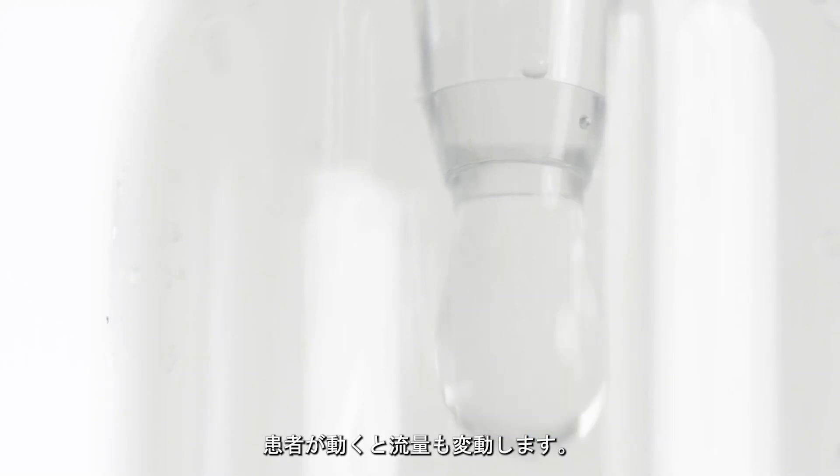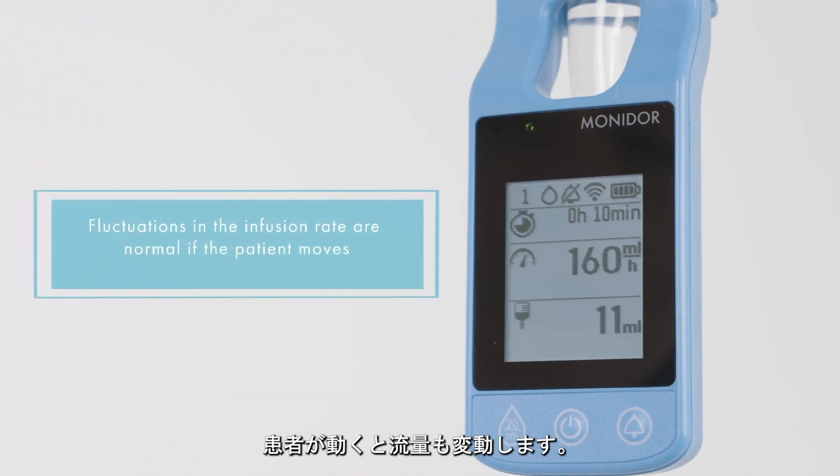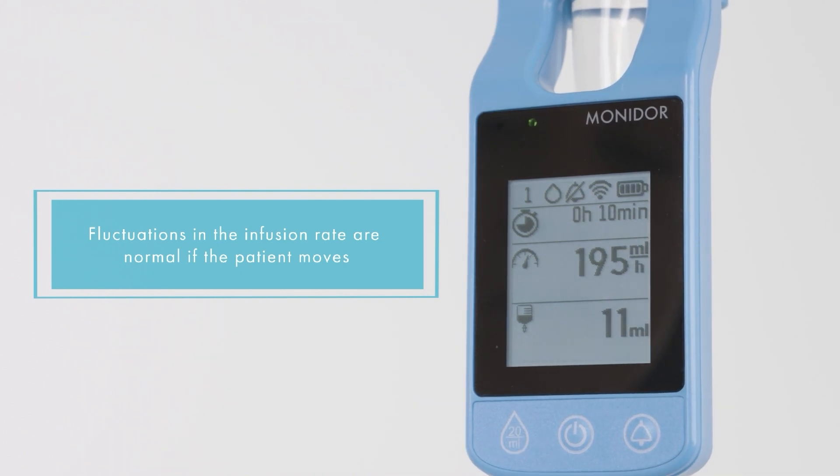The MoniDrop device doesn't adjust the infusion rate. Fluctuations in the infusion rate are normal if the patient moves.